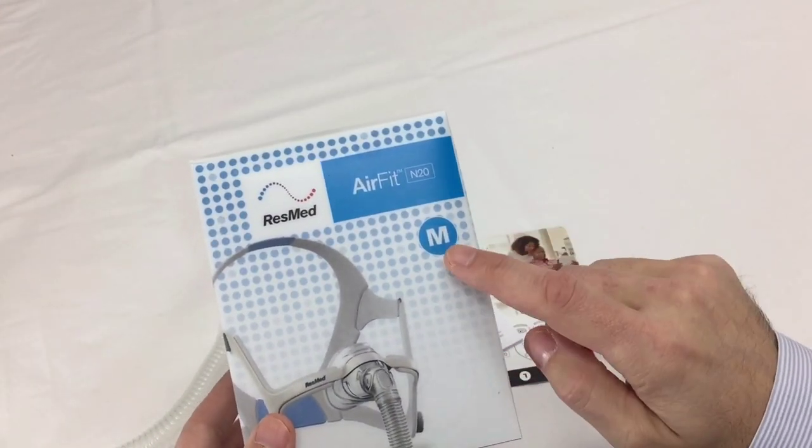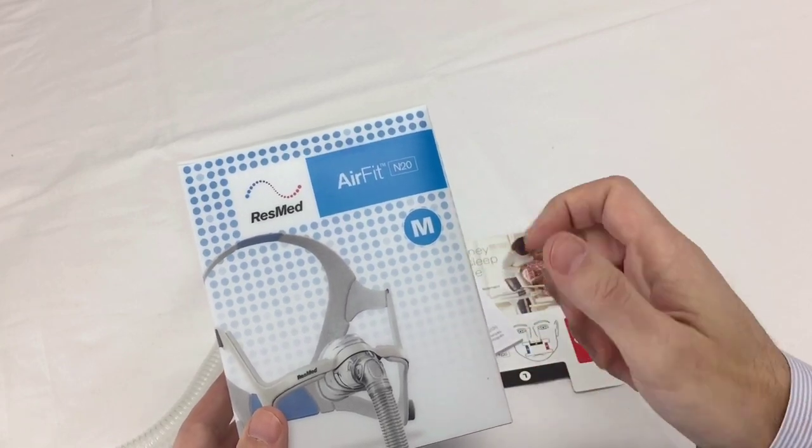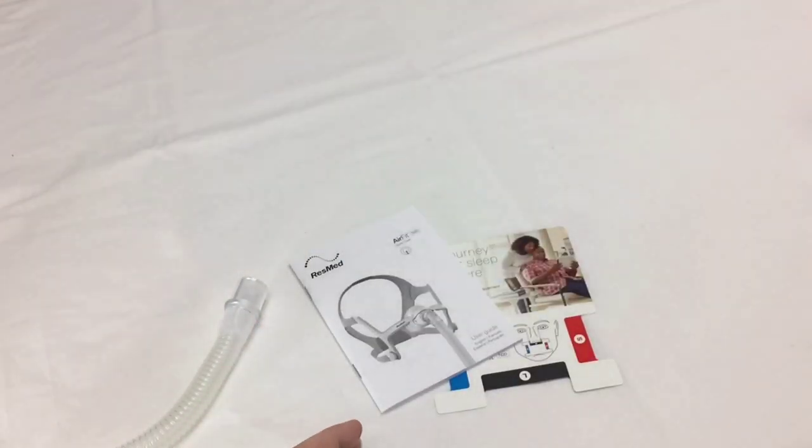And this is the for him version, different color scheme, but you can get this in a small, medium, or large. We'll look at the medium size today.